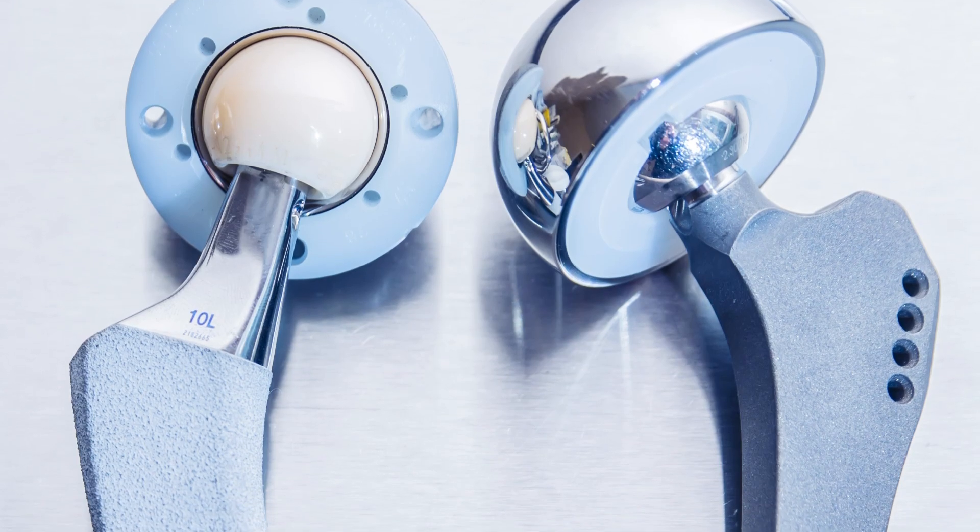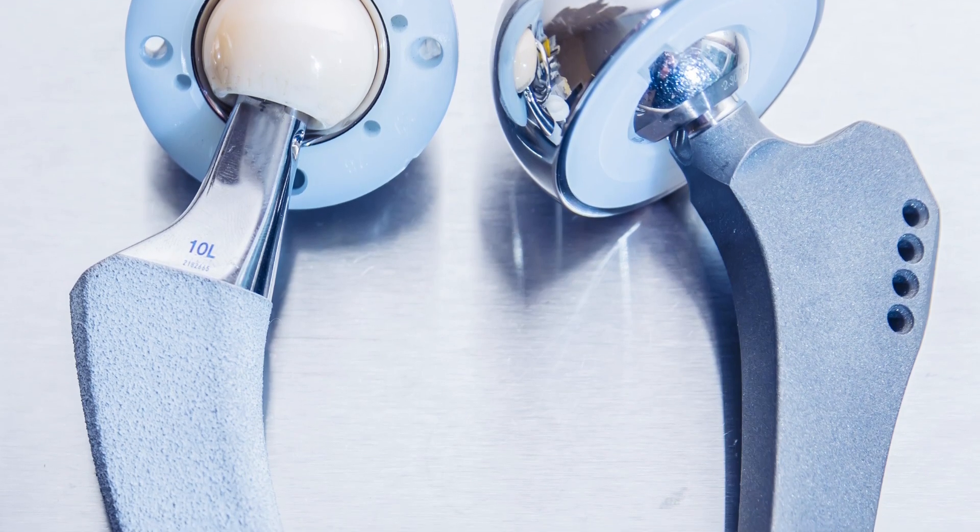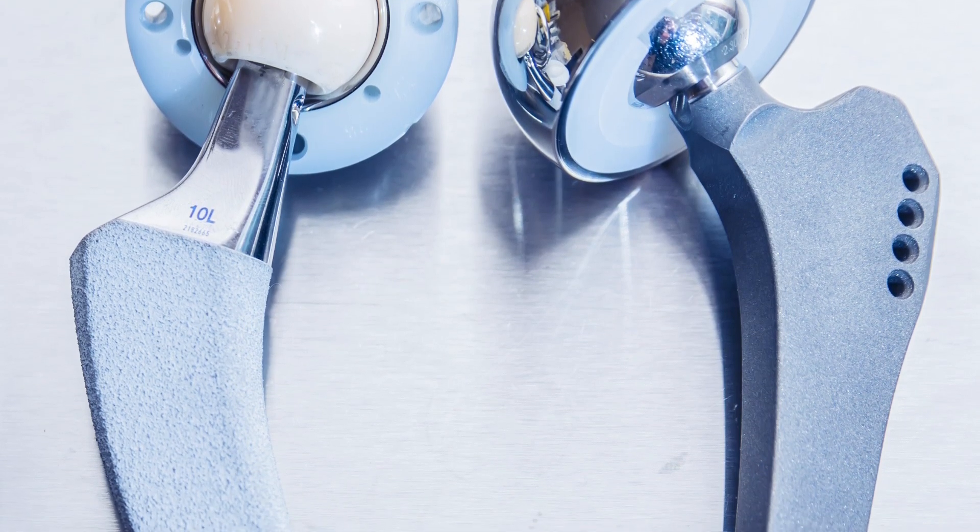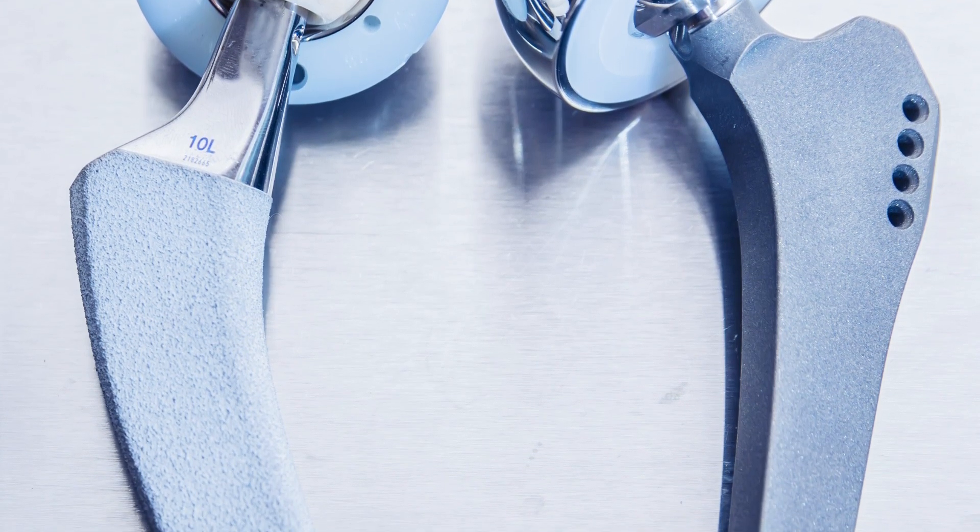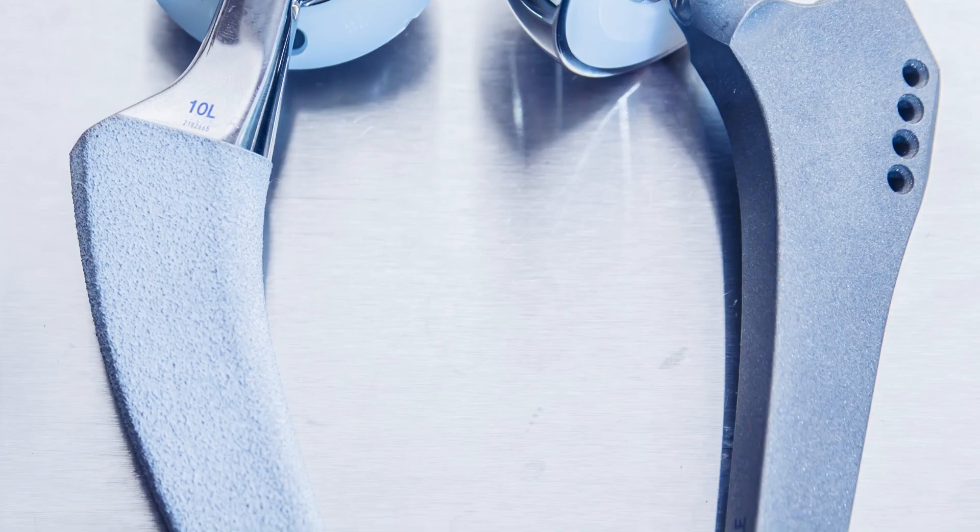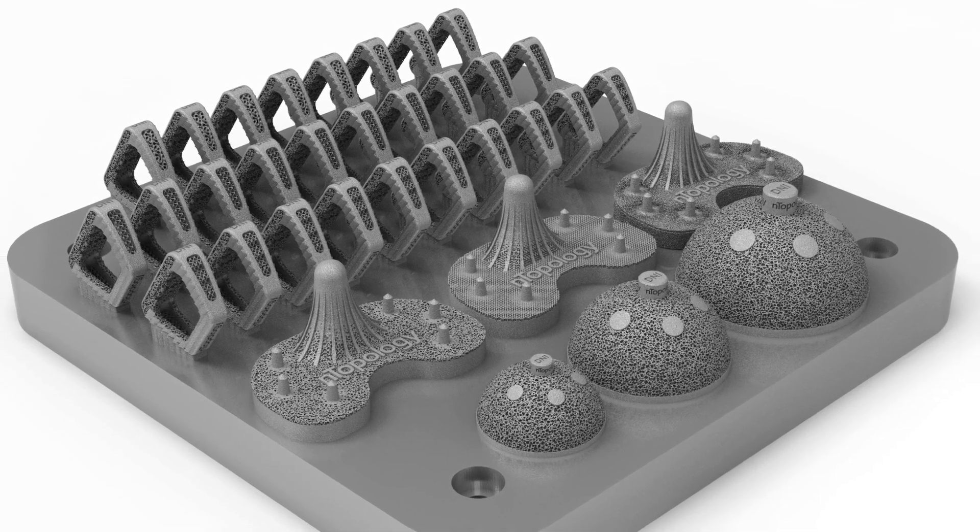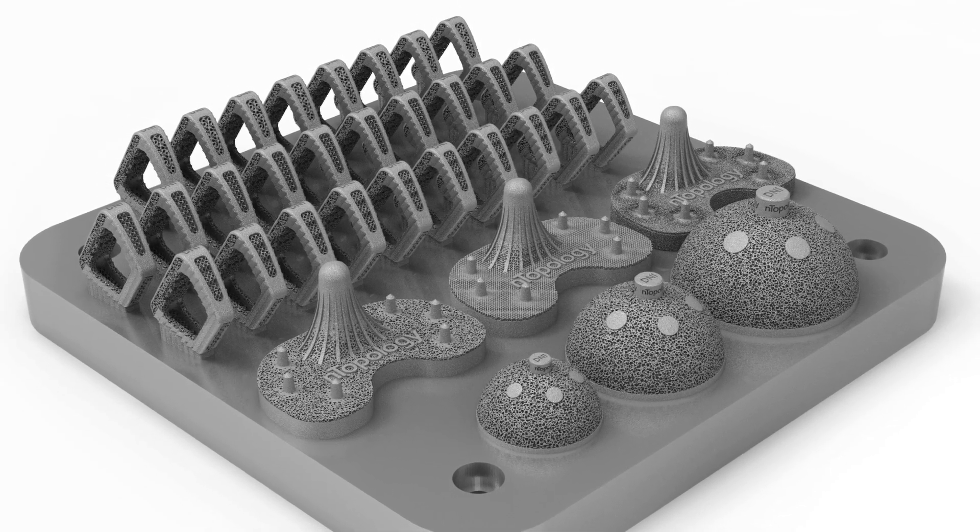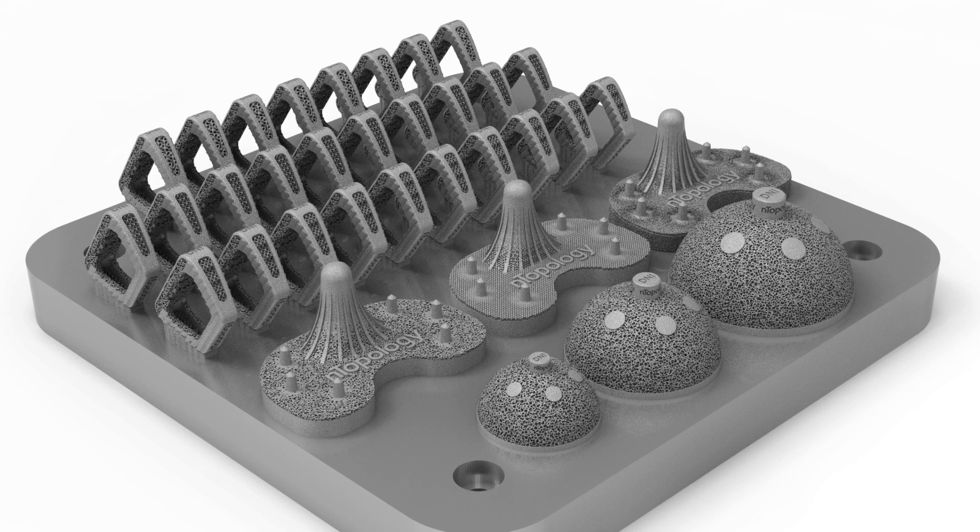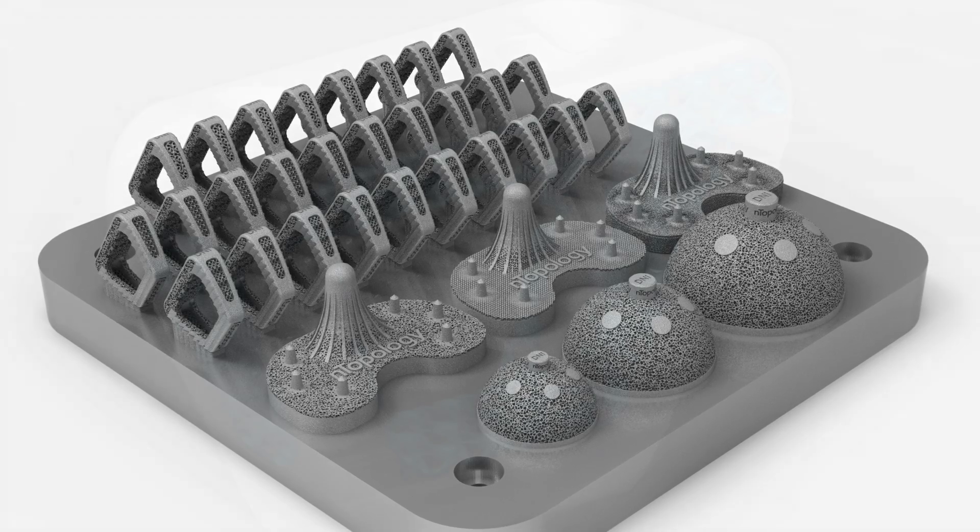With this degree of granular control, modern implants have seen an improvement in their ability to anchor onto bone, also known as osseointegration. And in addition, this greatly consolidates the production process, allowing the products to reach market in a shorter amount of time.